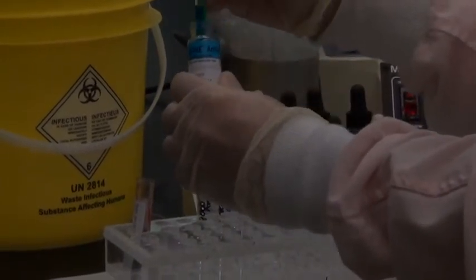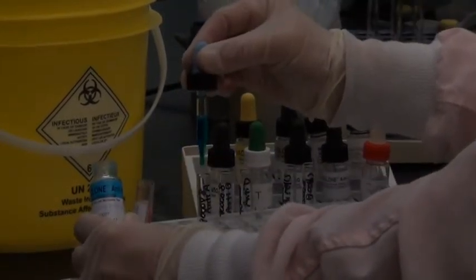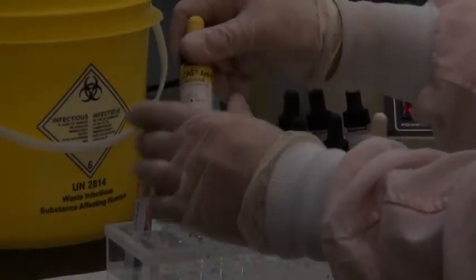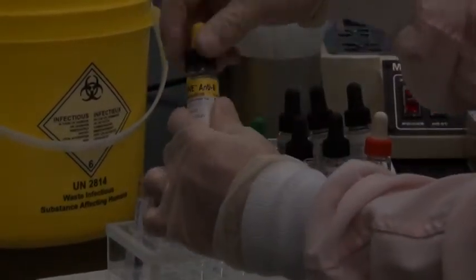Make sure you do your triple checks. So I'm reading it, it says anti-A, I'm pipetting one drop, I'm reading it, it says anti-A, and back in the rack, and I read it a third time, anti-A. So continue that with each of your reagents, pipetting them into the appropriate tube.